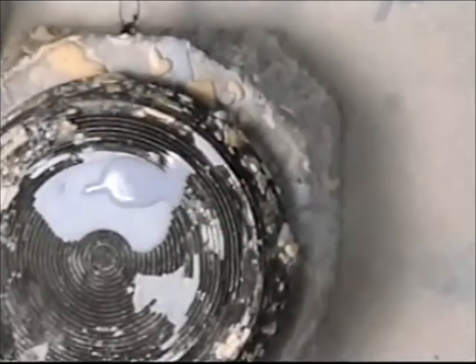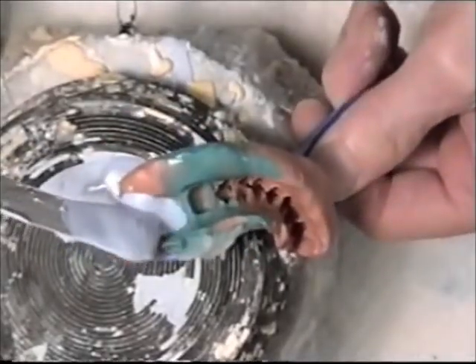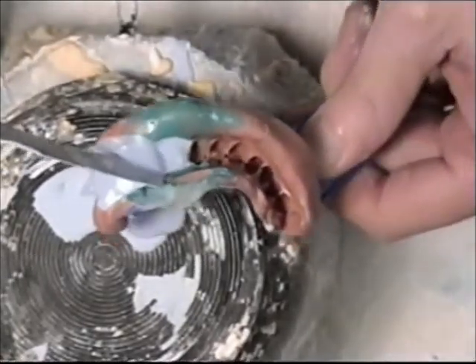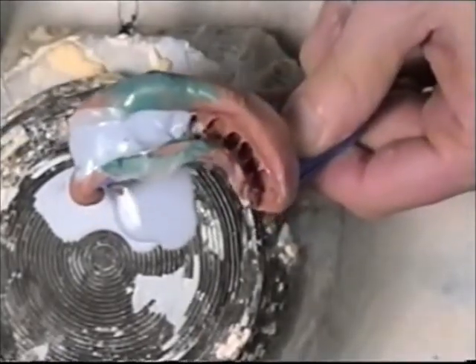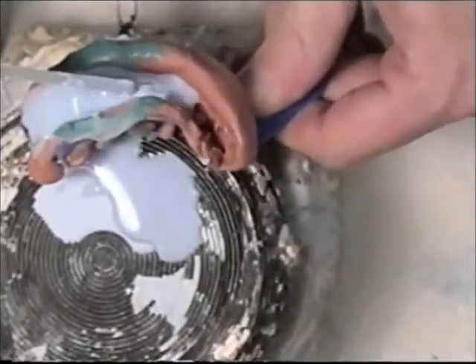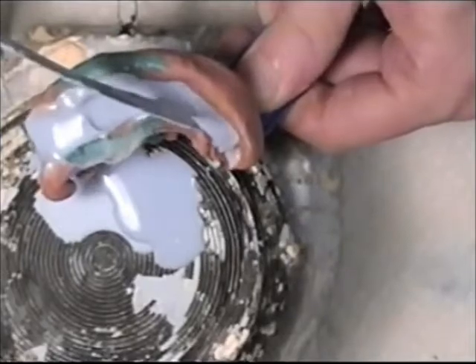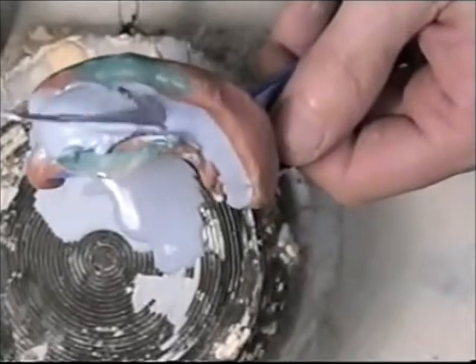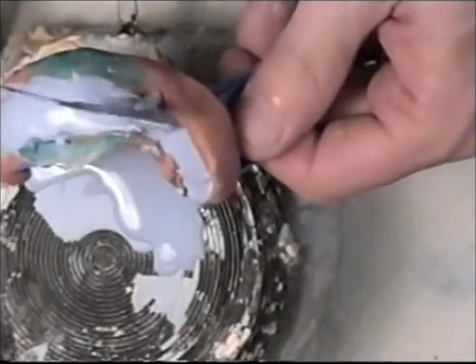Then I will do the last one. You want it to flow in all the little crevices. I think there might be a little void between where I just poured and placed the new stone, so I can just place it back on my vibrator.